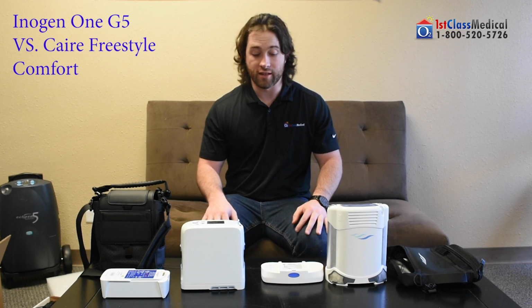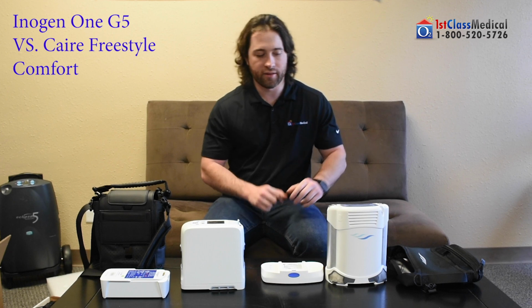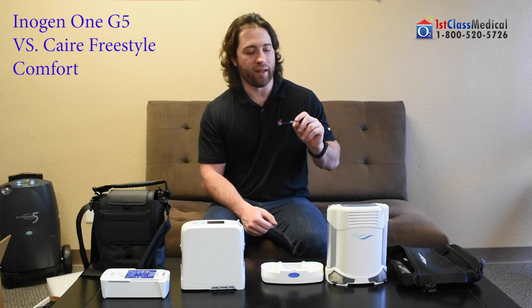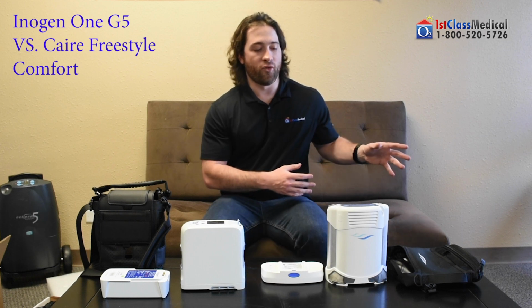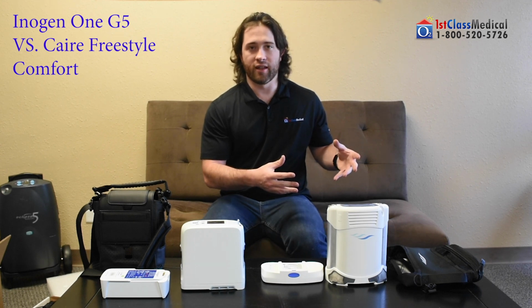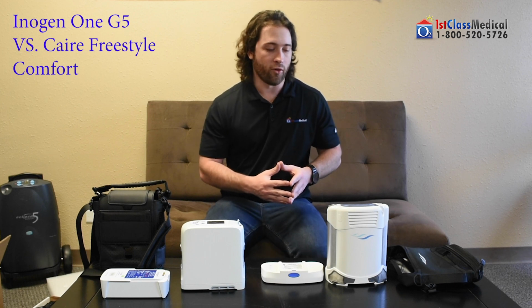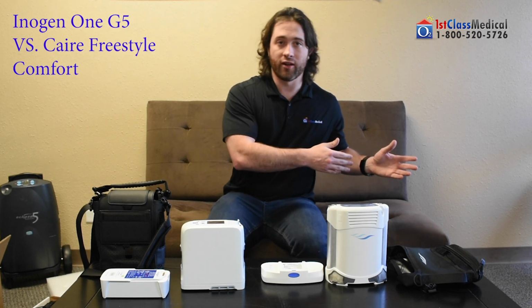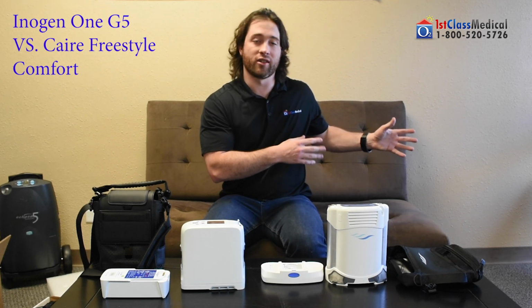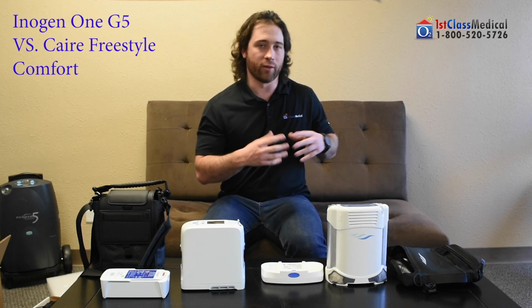What's going to be really the deciding factor? Inogen's always been known for its reliability and its durability in their machines. The Caire Freestyle Comfort, Caire actually makes units for our military, and that's one thing Caire's been known for: basically their reliability and their durability. If they're making it for our military, they've got to make sure this machine is going to last in extreme conditions. They've got to make sure this machine is going to work for them no matter the environment that they're in and what they're putting the machine through.